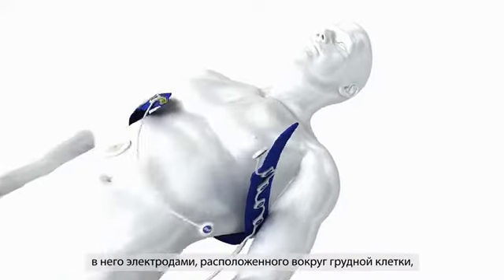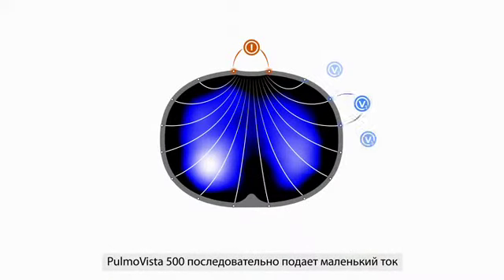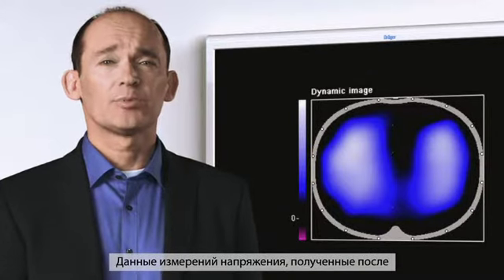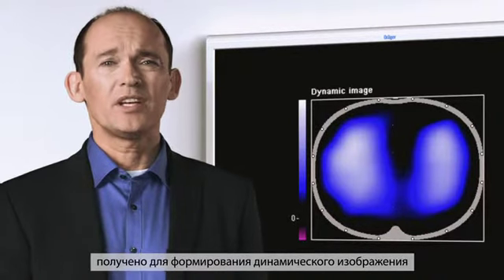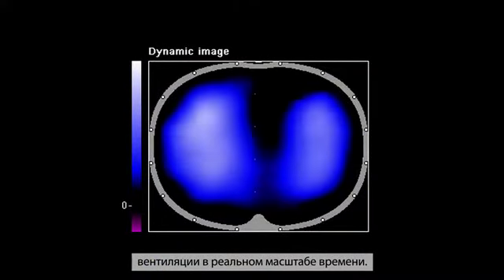Let's see how PulmoVista 500 works and how the information is provided. Using a silicon belt with 16 integrated electrodes around the chest, PulmoVista 500 sequentially applies a small current across two of the electrodes, while the resulting voltage changes are measured at all the other electrodes. Data from the voltage measurements associated with each complete rotation of current application is used to create an image. Up to 50 images per second can be displayed to form a real-time dynamic image of ventilation.